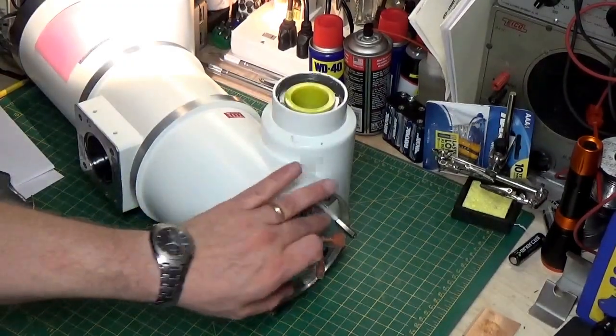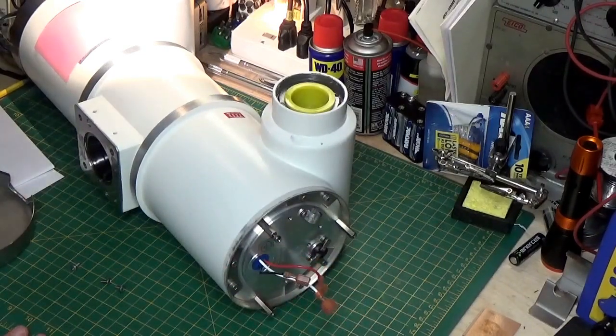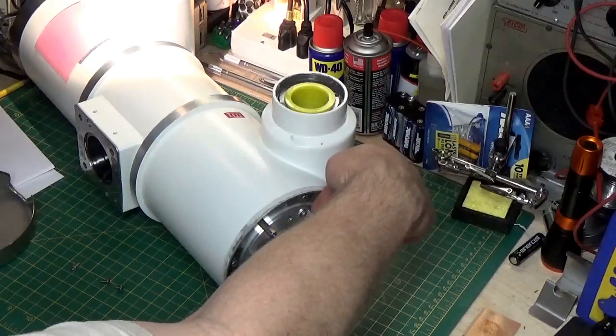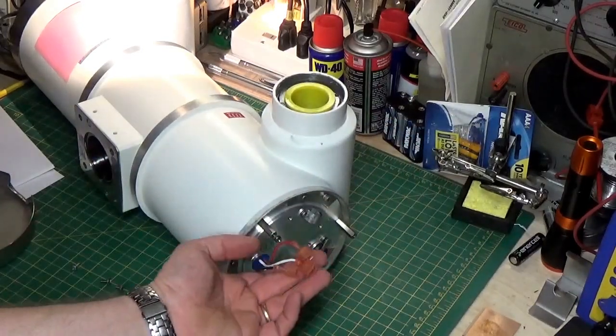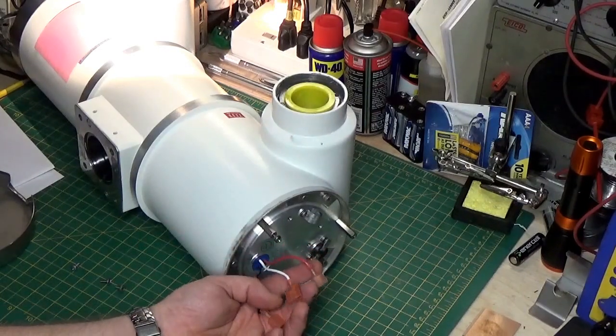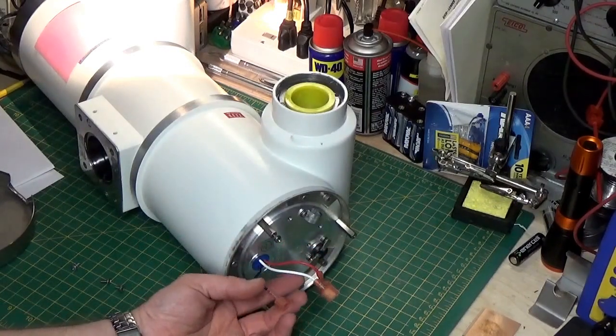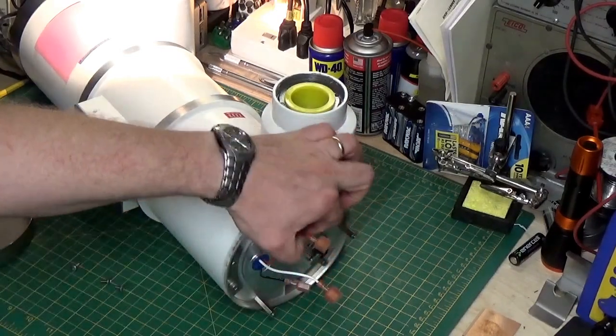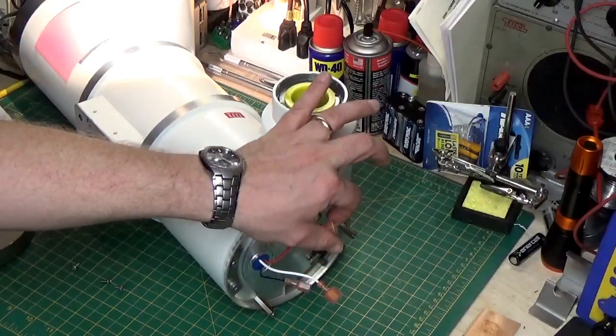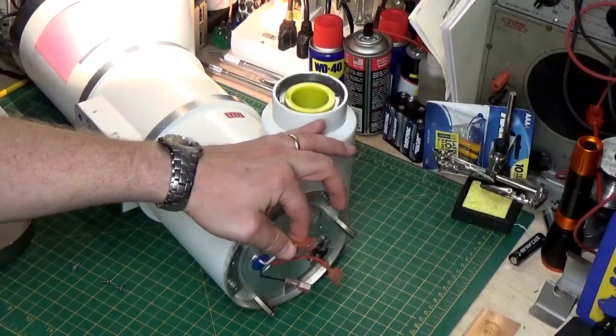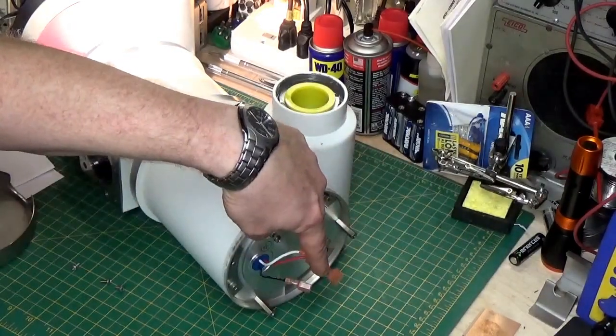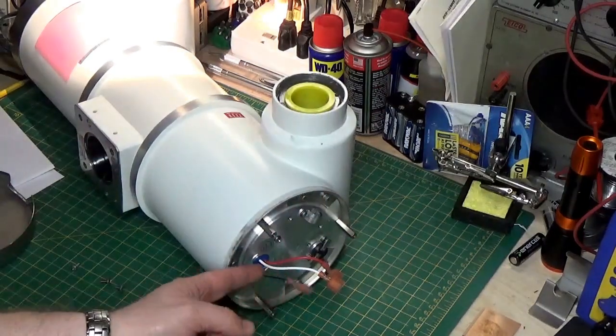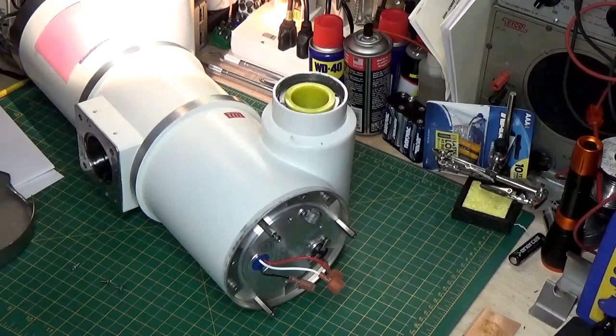Now, if we look at this side of the tube, this is the anode side, and there's a couple things here. There would normally be a cable that comes in through this little clamp, and it'll have three conductors. And this is a standard stator winding. So, you have your phase winding, right here, which would go to your startup capacitor, just like in a blower motor. You have your common winding, which ties the two coils together of the stator. And you have your main winding, which is this black wire. So, main phase and common, just like a normal squirrel cage motor.